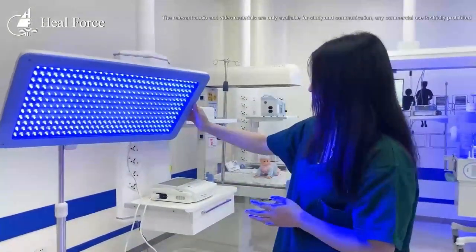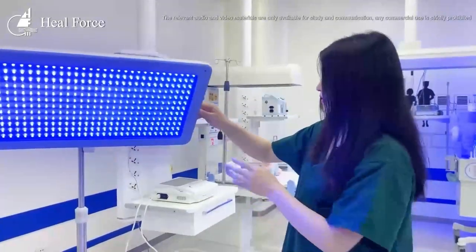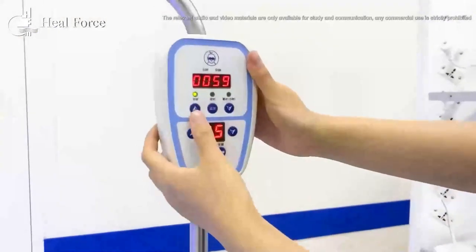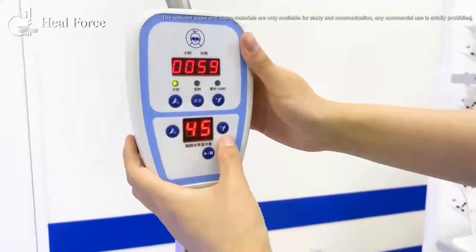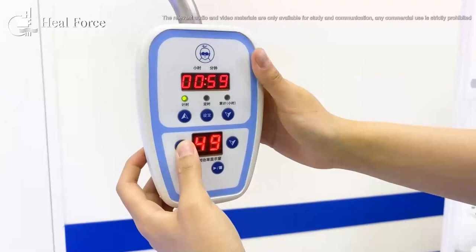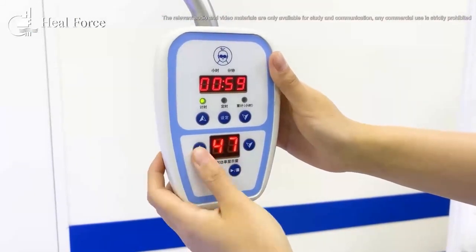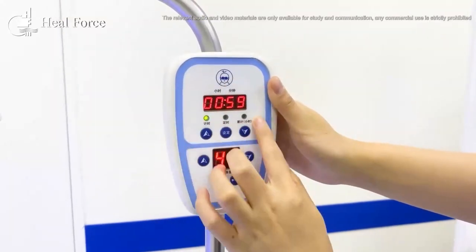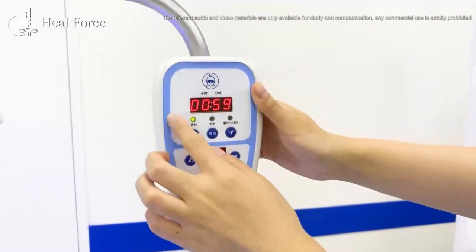In this design, it is directly and easily controlled. We can control the illumination and also set the time. We also provide an international version.